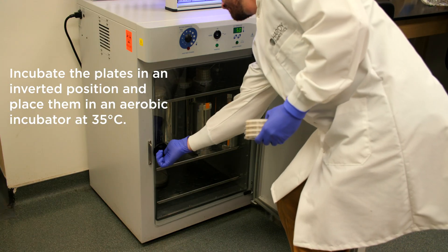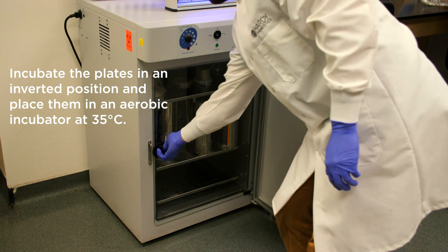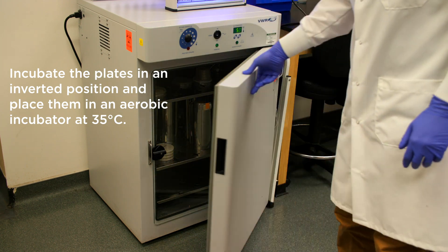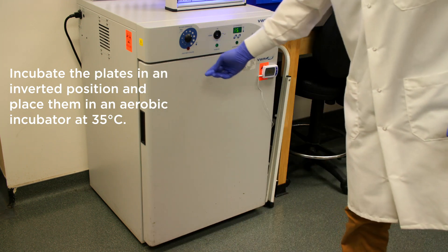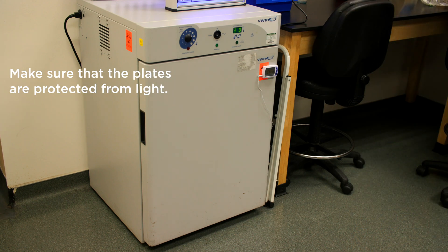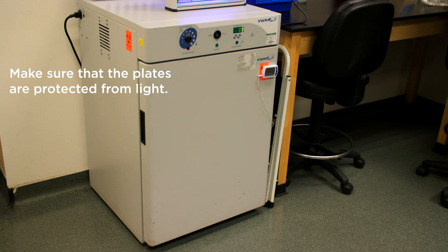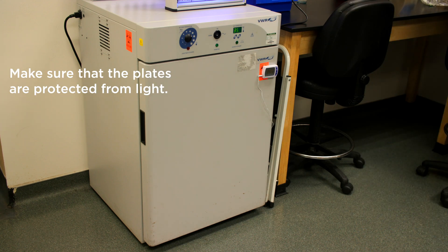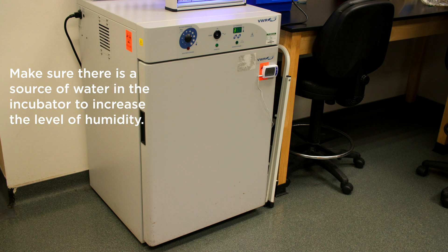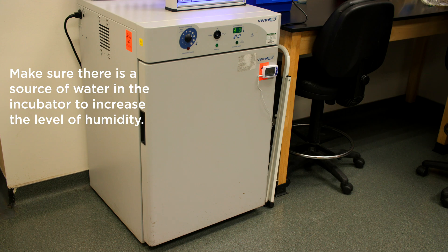Incubate the plates in an inverted position and place them in an aerobic incubator at 35 degrees Celsius. Make sure that the plates are protected from light and also make sure there is a source of water in the incubator to increase the level of humidity.